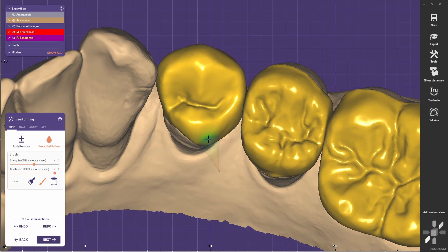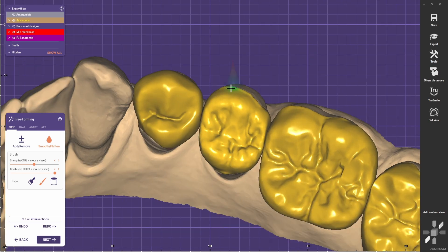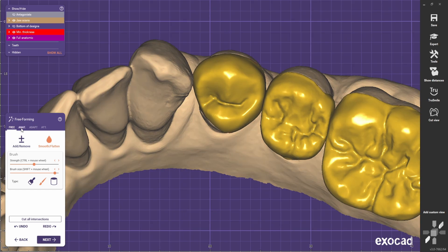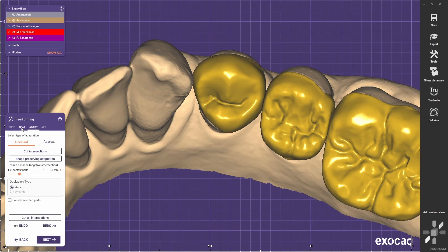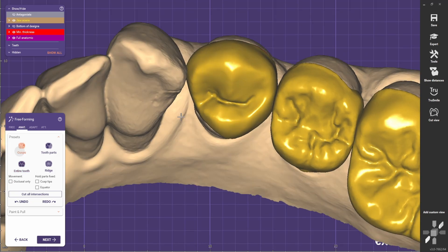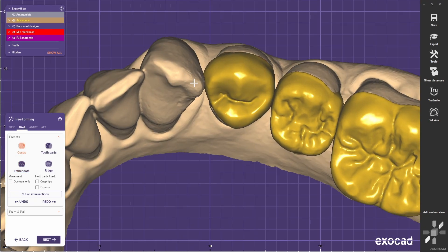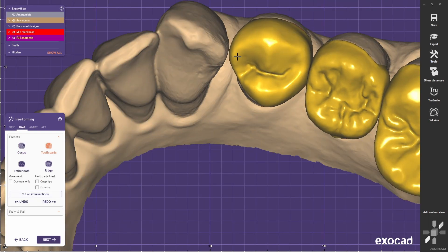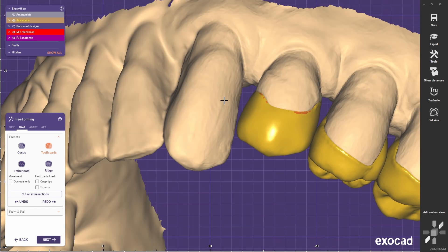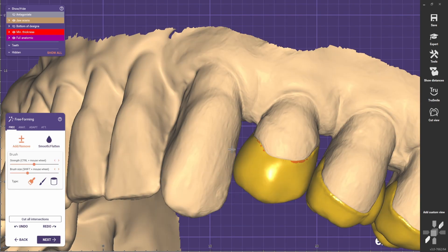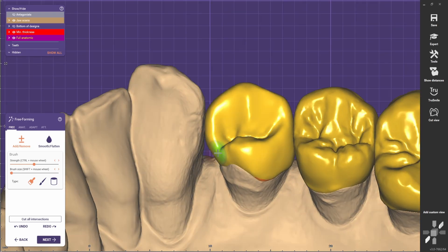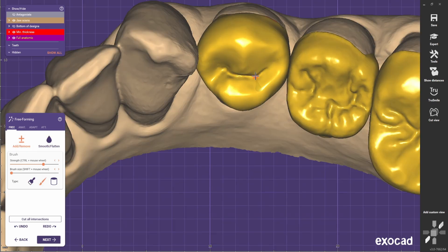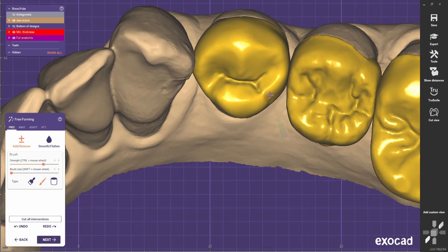I know that the contact is going to be extremely strong in this area, but I'm hiding the strength of it because otherwise I cannot see properly what I'm doing there. In the end I'll just let you see the occlusal and see what happens there. Next, and now we start playing with shapes.